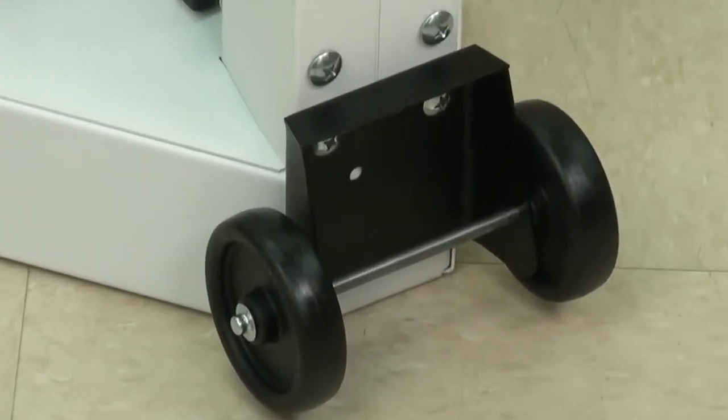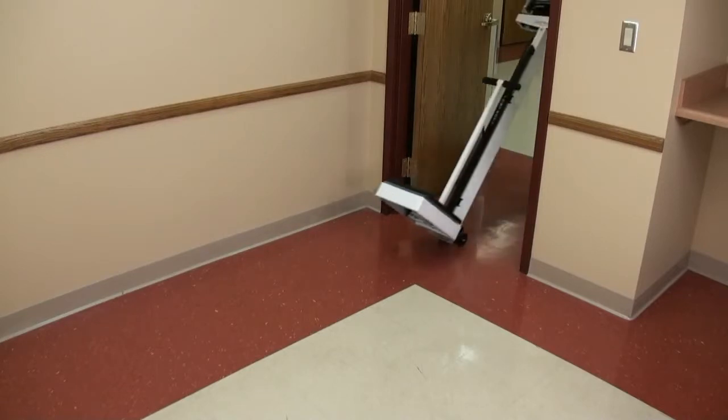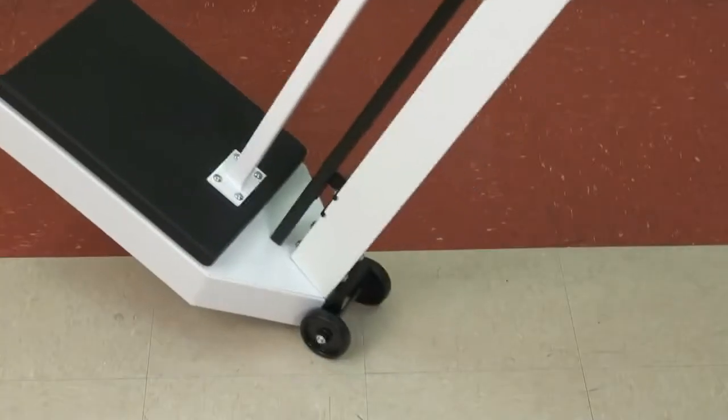With two rear wheels and weighing in at less than 36 pounds, this scale is mobile enough for transport to various patient rooms.